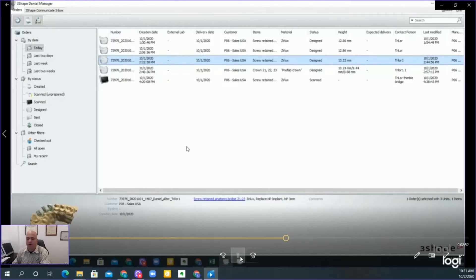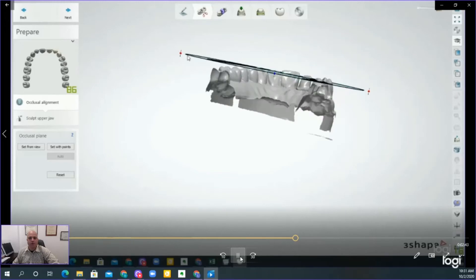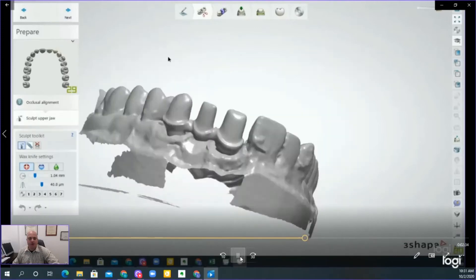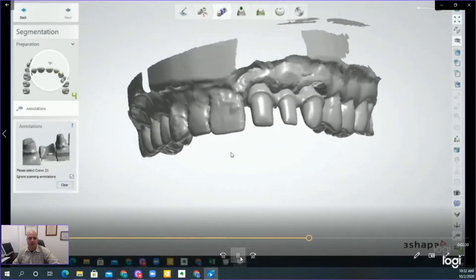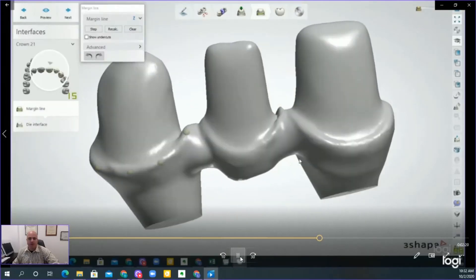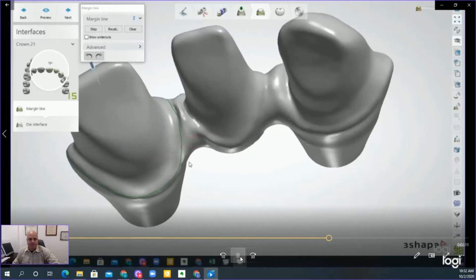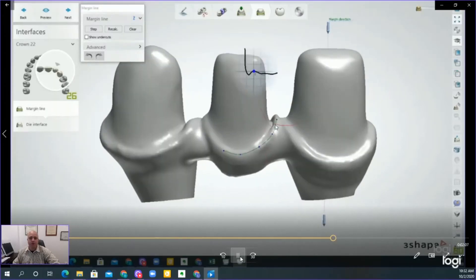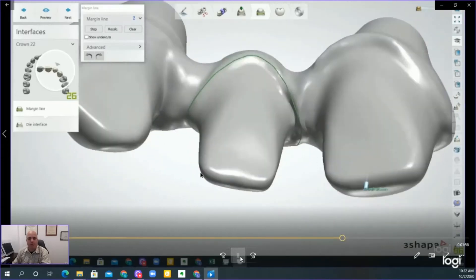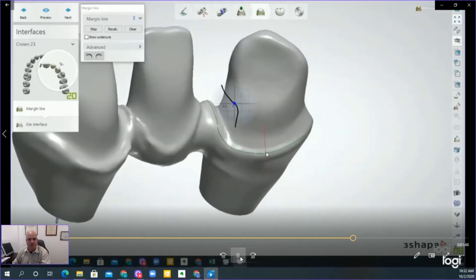You can move the screw holes as needed. I then copied and appended the CAD design — you can see I selected three individual crowns in the order form. I went in, cleared the previous design, and just selected the three crowns, annotating which crowns they are. I'm doing the path of insertion, making sure there are no severe undercuts. Now I plot my margin around the design. By the way, while doing this, you can export the previous file and begin to mill the Trilor bridge while you're designing the restorations. The Trilor Toronto Thimble bridge can be milled out of Trilor material while you design your restorations — which can be e.max, zirconia, or whatever you prefer.